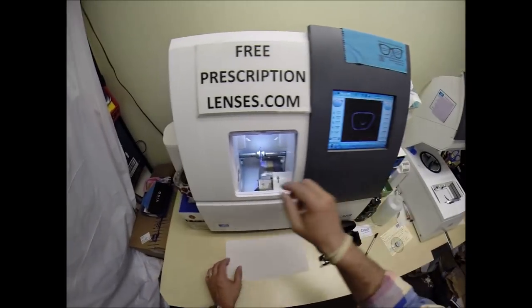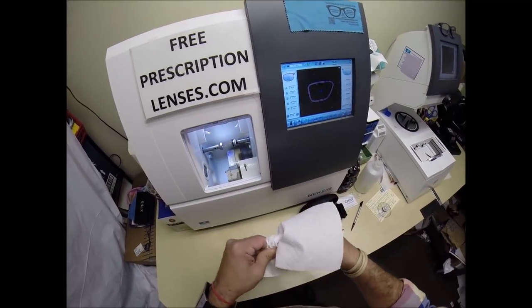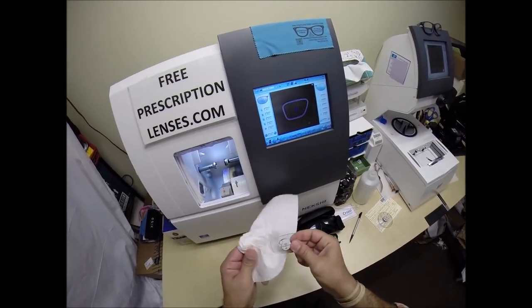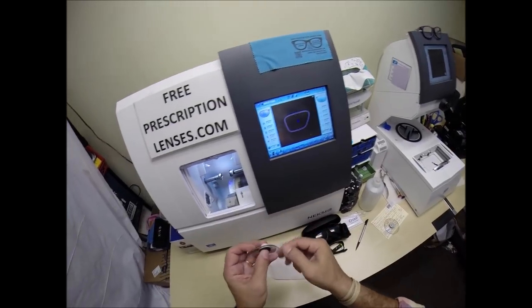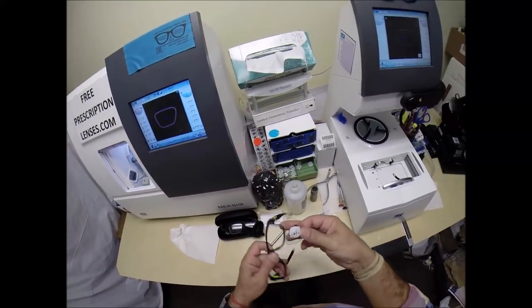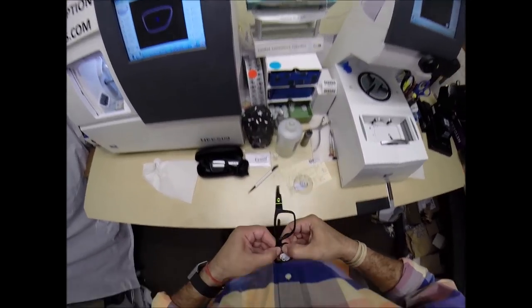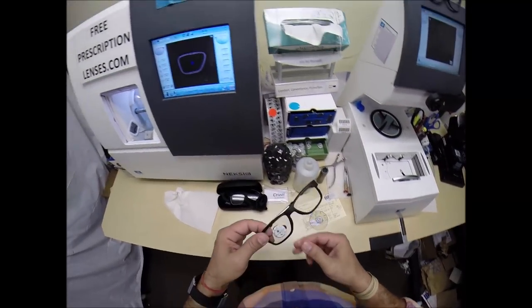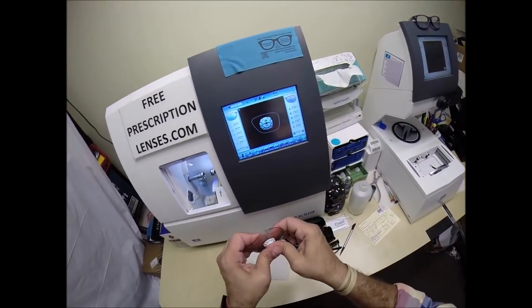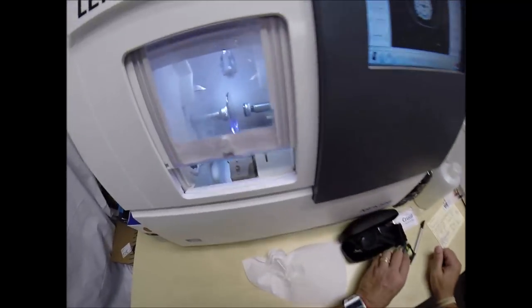I will open this door — okay, that's dried off. Let me make sure there's no more optical debris on the edge of the lens. Take your frame, tuck it into the outside corner of your frame first, and using my thumbs press down the nose — and it snaps right in. So let's go ahead and start cutting the left lens.